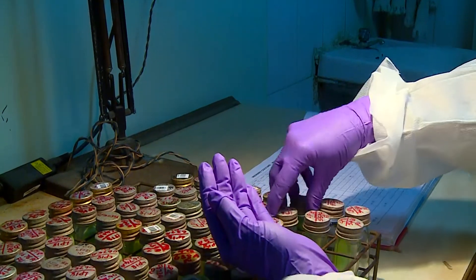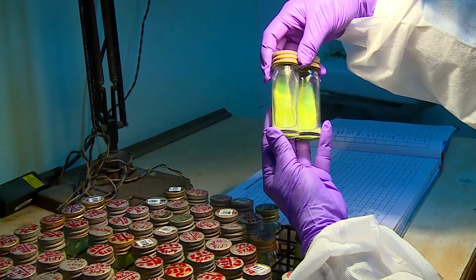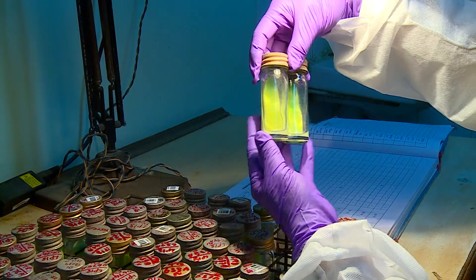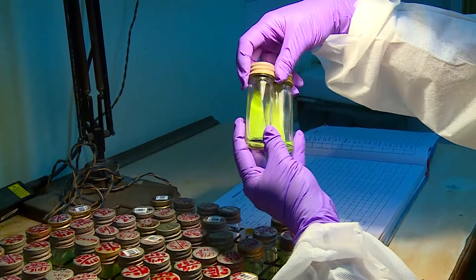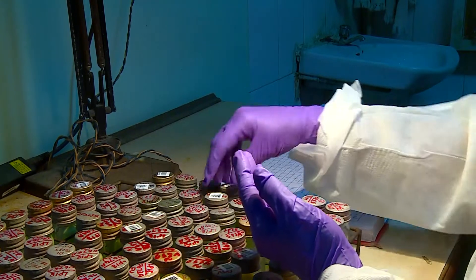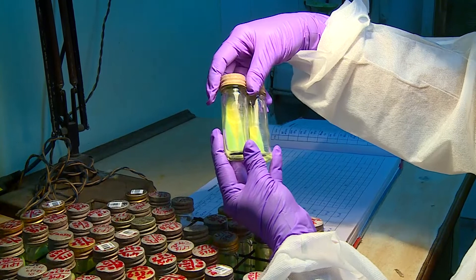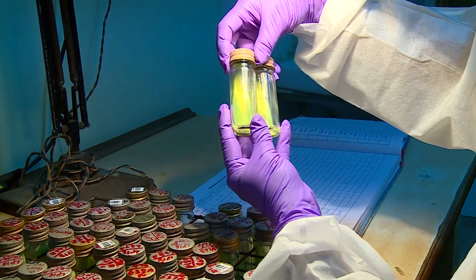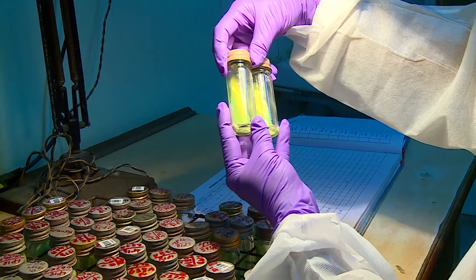These are negative slopes. These slopes appear contaminated. The negative slopes have to be incubated up to 8 weeks before they can be declared as negative. The contaminated slopes will have to be removed, and positive slopes will have to be identified using colony morphology and other identification tests, and then subsequently used for drug susceptibility testing or for any other molecular testing.